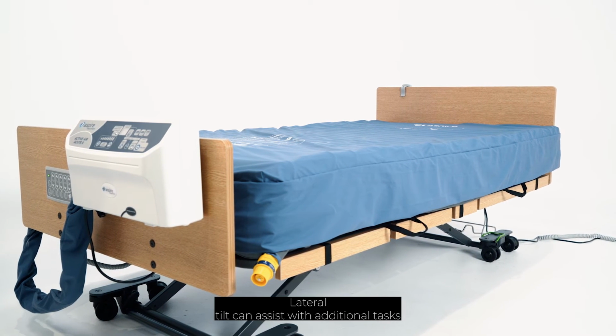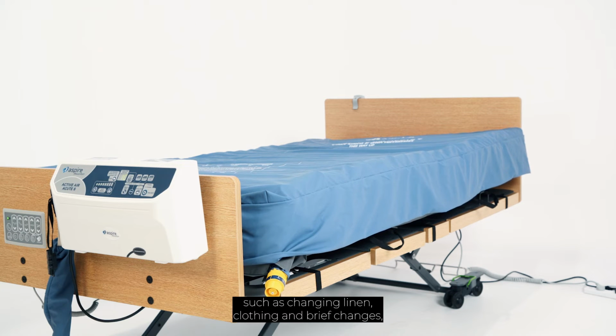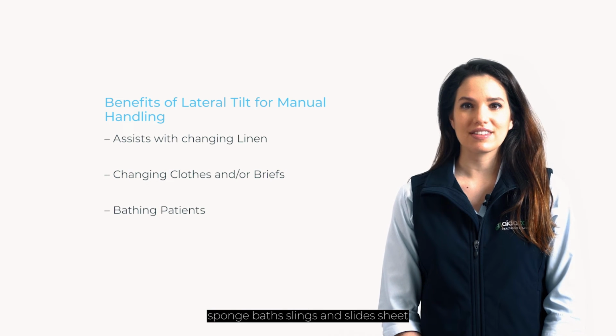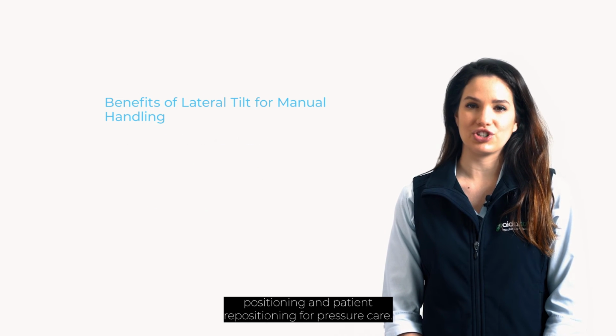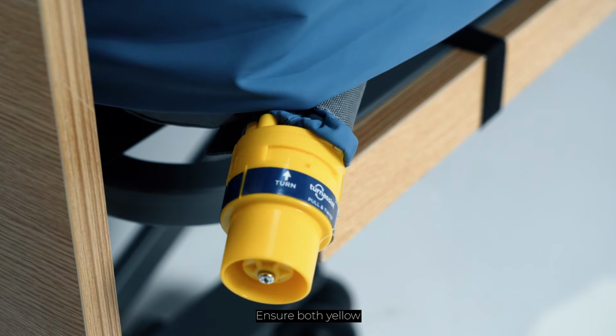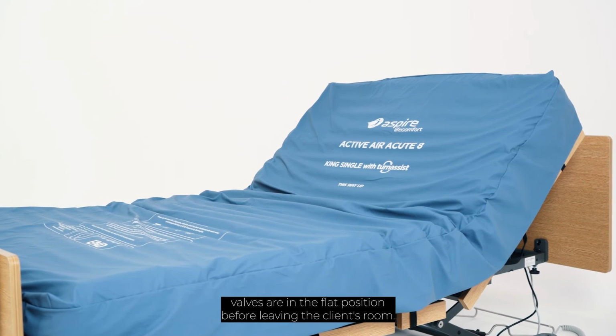Lateral tilt can assist with additional tasks such as changing linen, clothing and brief changes, sponge baths, slings and slide sheet positioning, and patient repositioning for pressure care. Ensure both yellow valves are in the flat position before leaving the client's room.